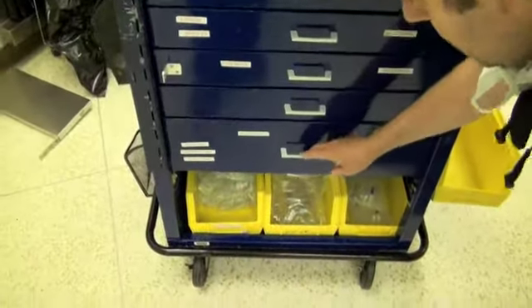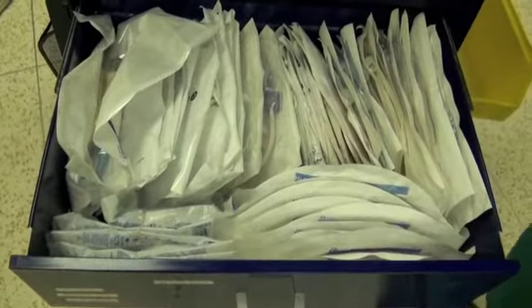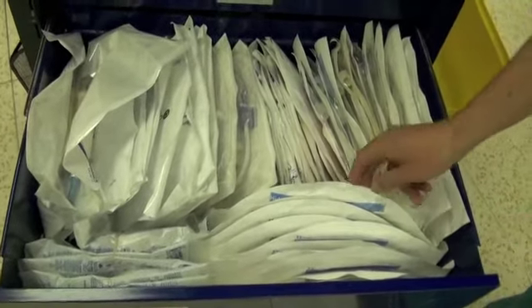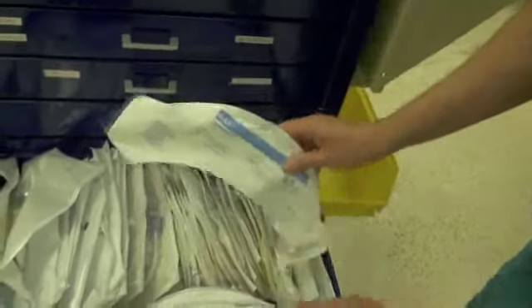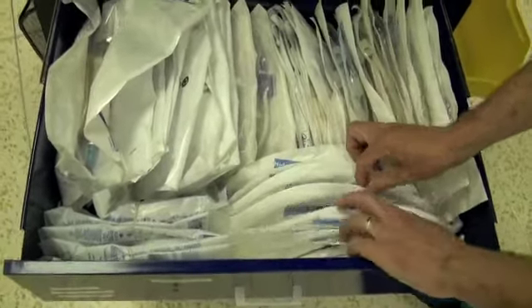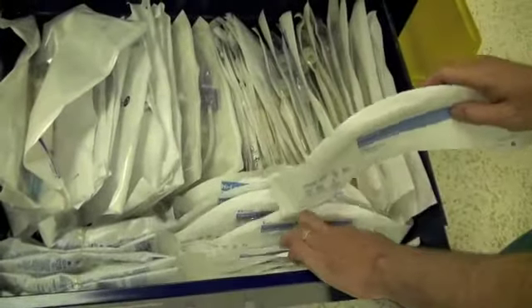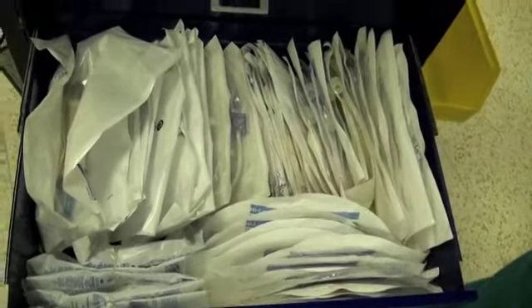Our lower drawer, the last drawer, essentially contains all our big equipment. So, first thing to note is that all our endotracheal tubes are in this drawer. So we have got our standard tracheal tubes of various sizes. The biggest size that we keep in this drawer is an 8.5. The smallest is a 6. Most women will tend to get a 7.5 tube, and most men will tend to get a size 8 tube, with some variation. But essentially most of them receive that size.